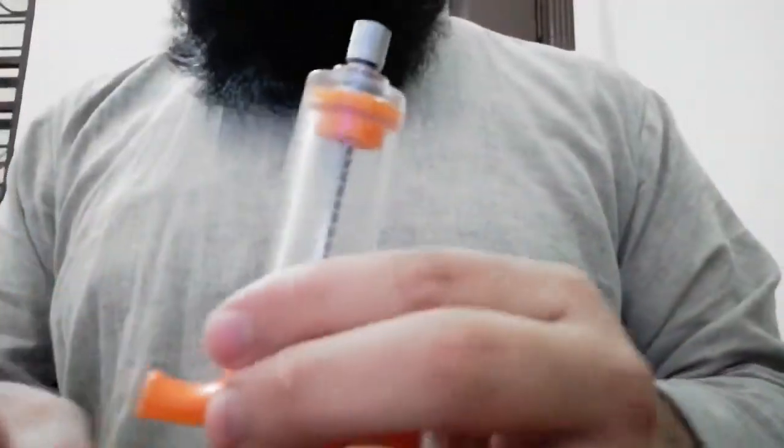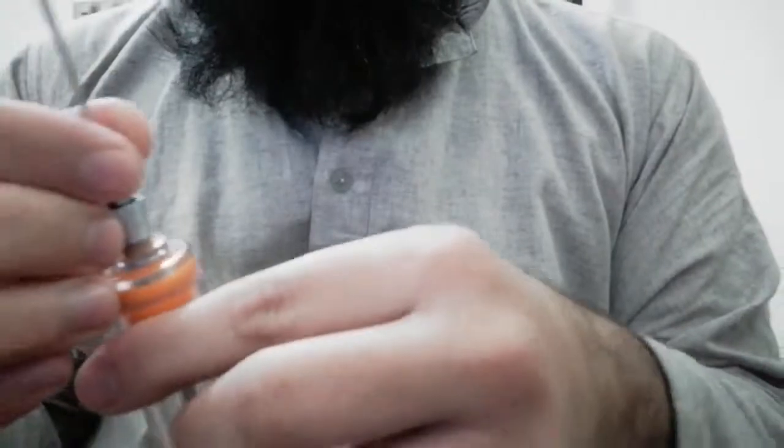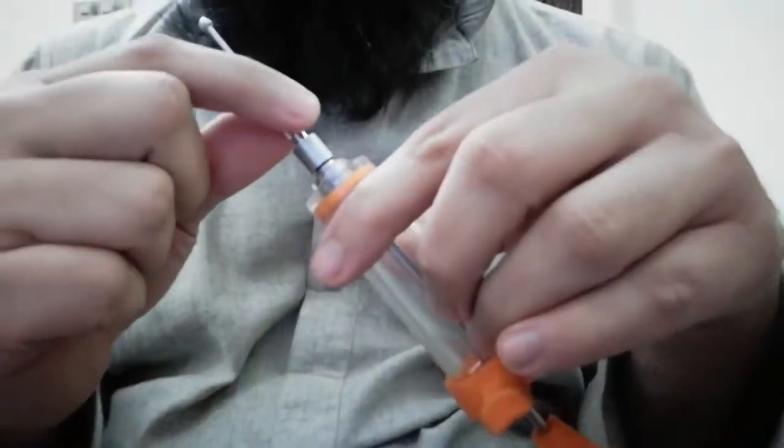Today I am going to tell you how to properly fit and use our Pakistan made syringes and needles. These syringes are used to hand feed animals and birds which are sick or you are trying to raise up by yourself.